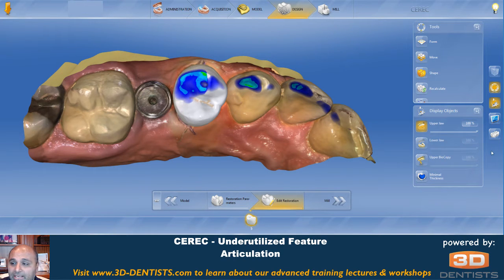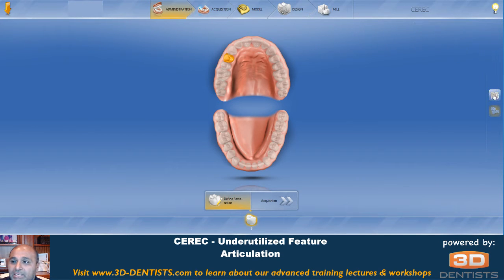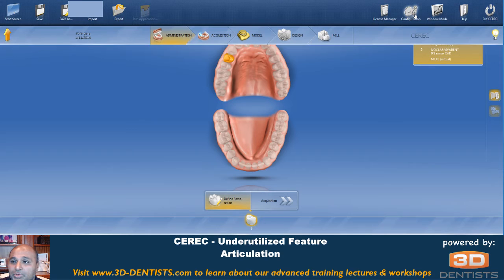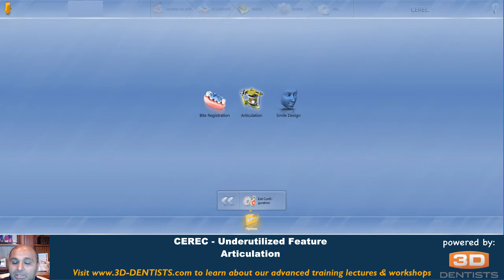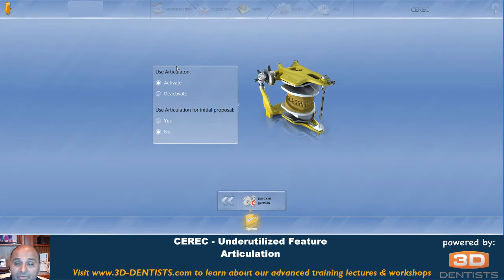To use the articulation, typically right in here there's going to be an articulation dialog box — but here we can see it's not there. When I don't see it, the first thing I do is go to the administration screen and click case details or case options, and I should see a button to turn on articulation — but again, I don't see that either. So this leads me to go to the configuration options, then go to articulation and activate it. When you activate it here, you're telling the software that you want the articulation feature to be available.